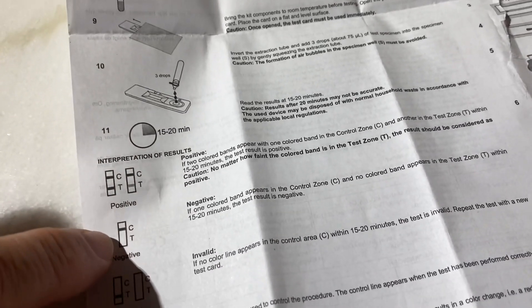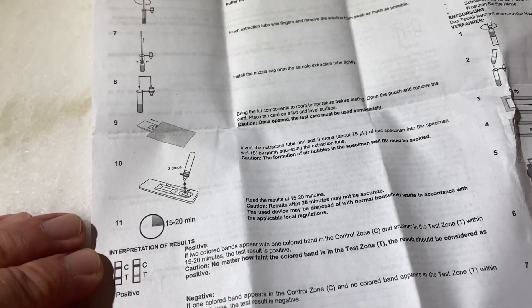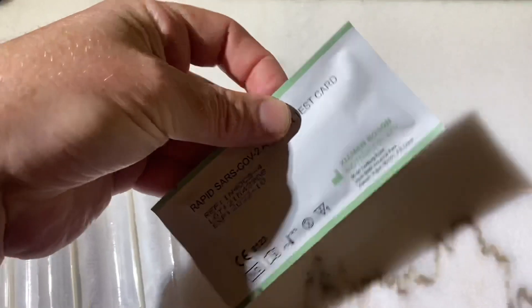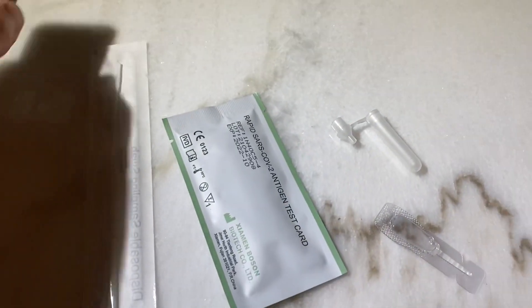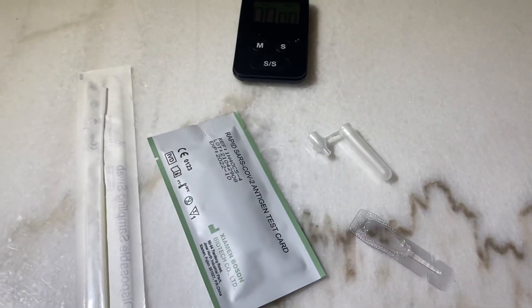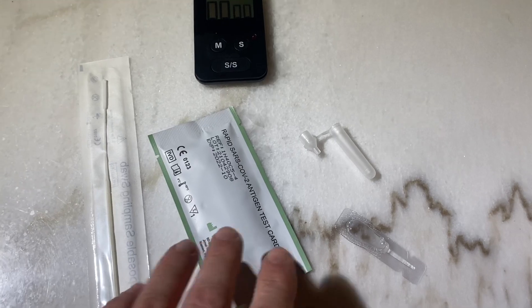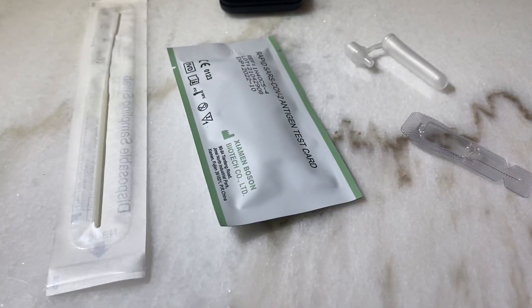All these things take some time to read through, and you want to get it right from the beginning — especially if you only bought one test. Inside the box we have cotton swabs, and then we have these packages: one contains the little plastic piece that will tell you if you have COVID-19, and then we have the solution. What we need is the container, the solution, and a timer. You may also need some paper to blow your nose, because you should blow your nose before you carry out the test — that's where it all starts.